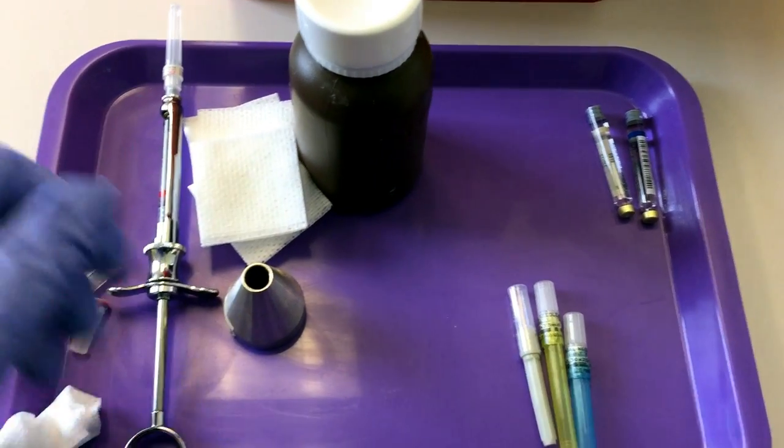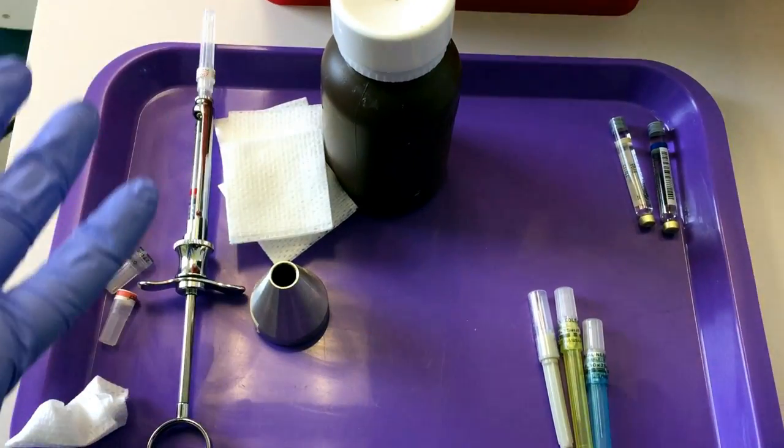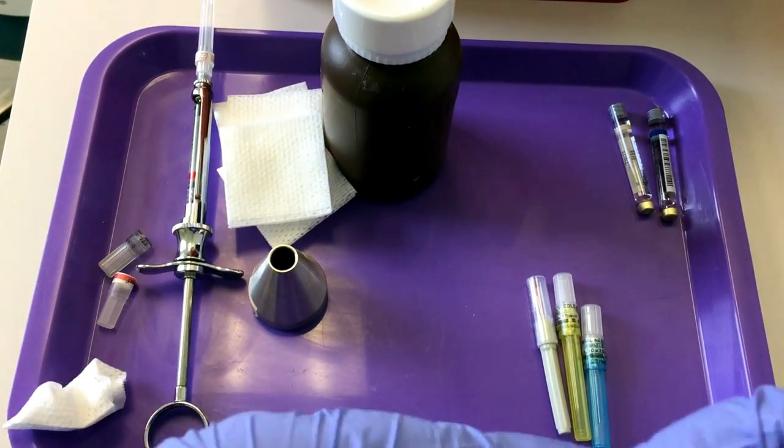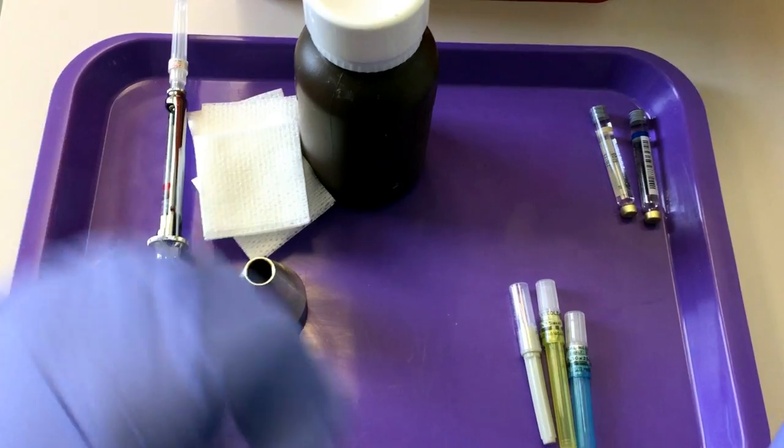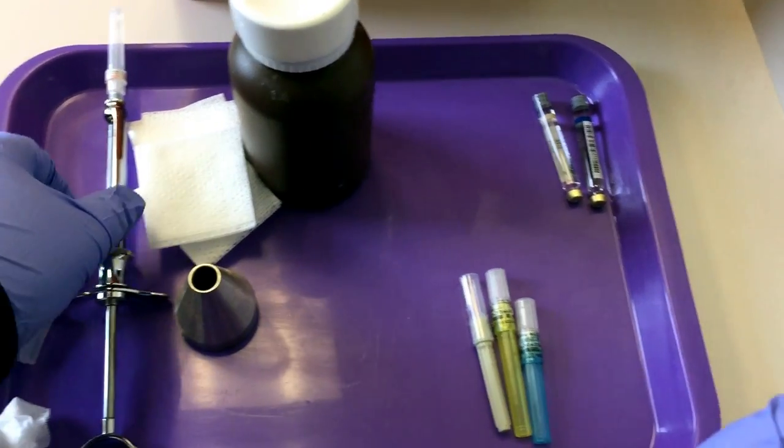You might set it up before treatment, but you probably want to drape it with the patient napkin so they don't see it, because this is what frightens patients most often.